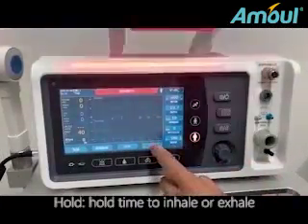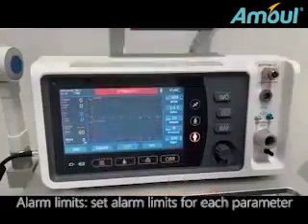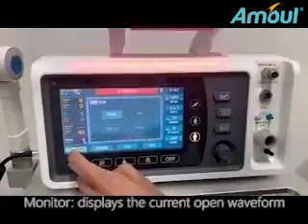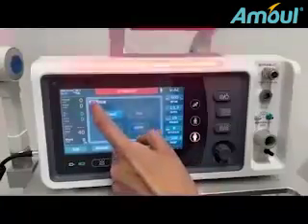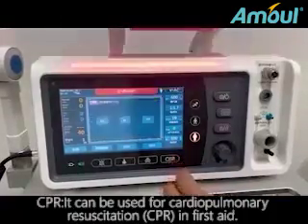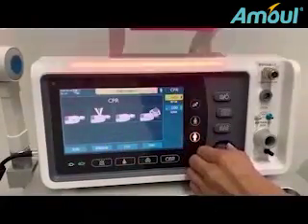Hold: hold time to inhale or exhale. Log: historical alarm events can be reviewed. Alarm limits: set alarm limits for each parameter. Monitor: displays the current open waveform. CPR: it can be used for cardiopulmonary resuscitation. In first aid, it can adjust the tidal volume and oxygen concentration.